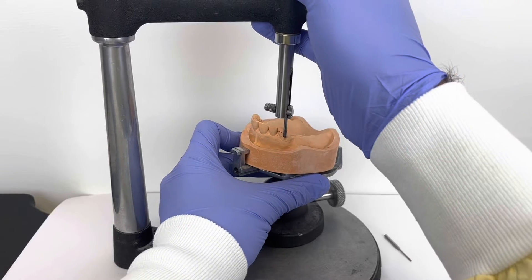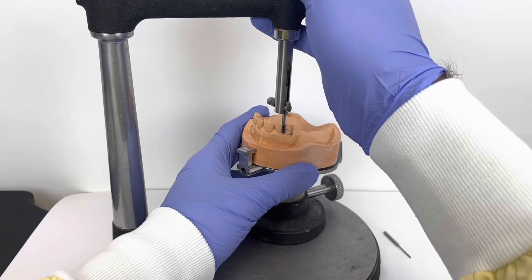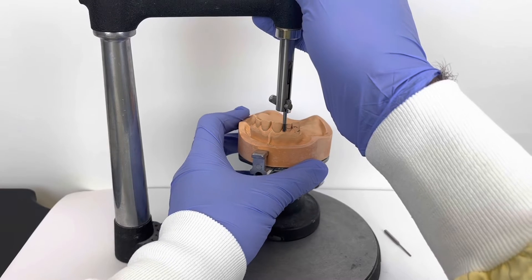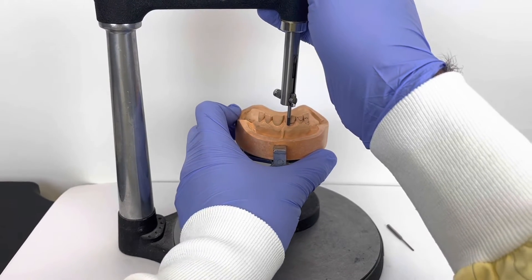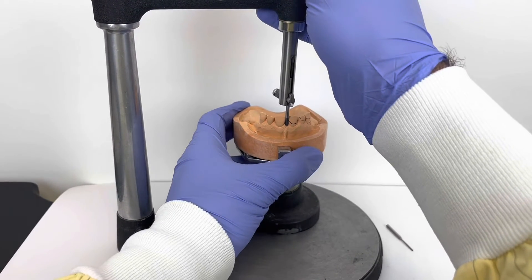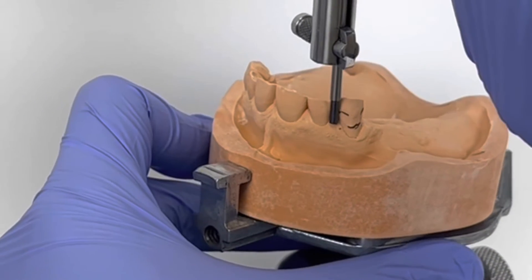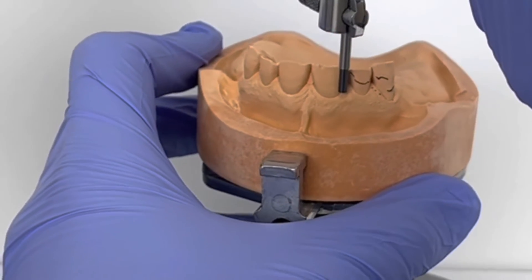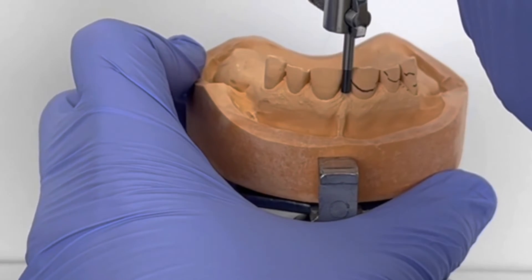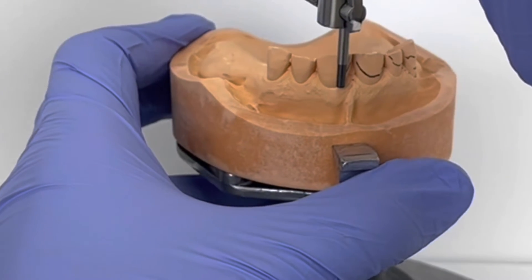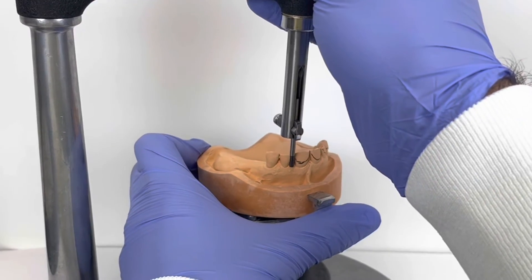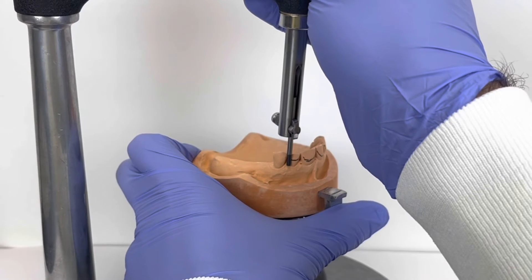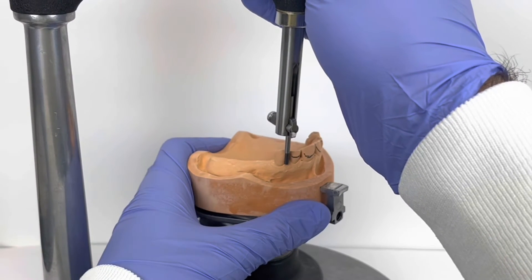Both hands are used during this: one hand controls the mandrel's movement, the other controls the table's movement. The mandrel can also be rotated to ensure that the carbon marker, and not the metal shield, touches the teeth after all necessary survey lines have been marked.